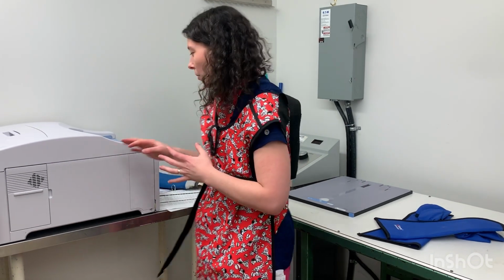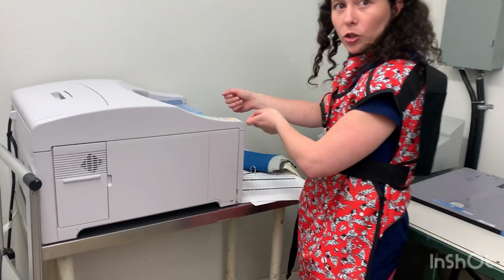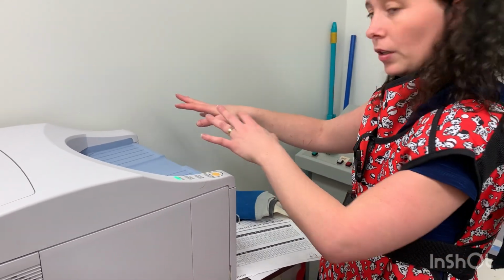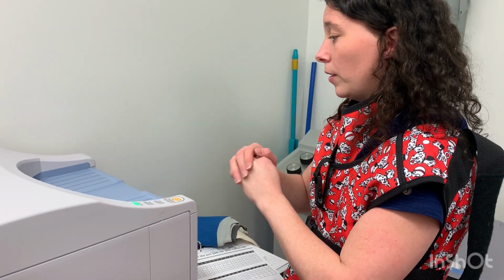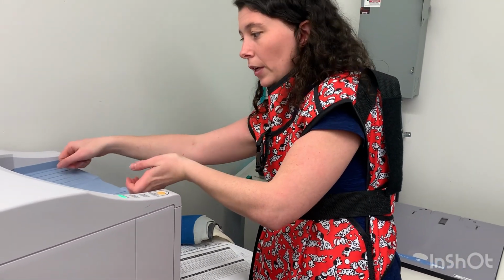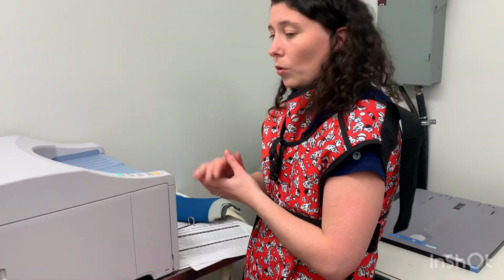Whereas the automatic processor is kind of the same thing as what we have here. You'd have a top to it though, and you would insert your image, same as you did here with the cassette. You'd insert your cassette, and then in the processor you would close the lid. The important aspect is that you're not shoving it in kitty corner, but gently placing it in directly, and then we close the lid, and it will go through the process.